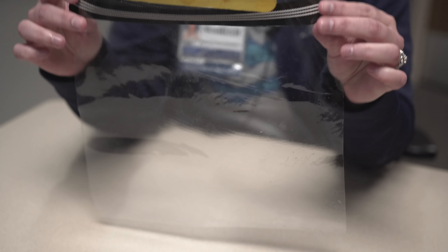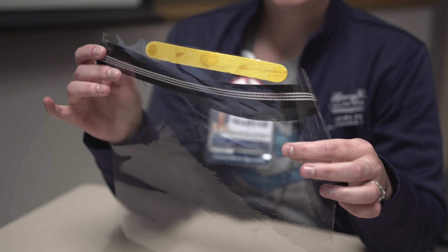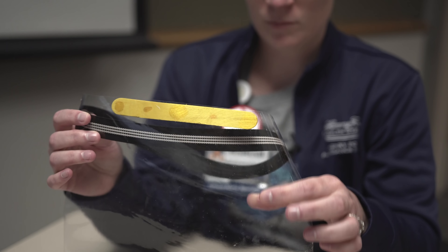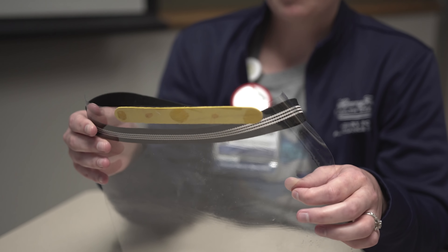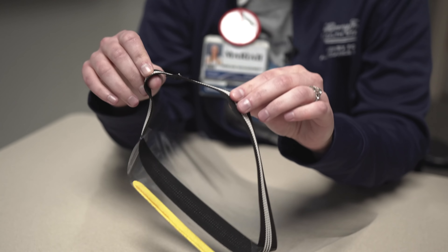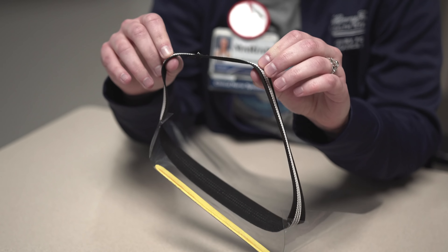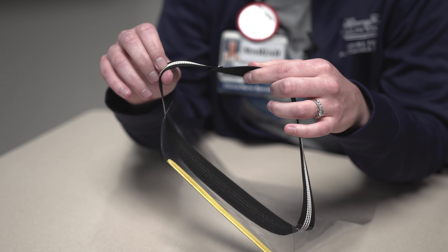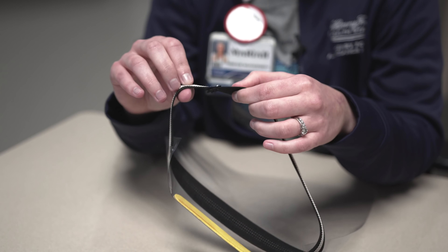For this particular product, we chose a material that was easy enough to see through and that could also be bleached while maintaining the integrity of being visibly seen through. With staff comfort in mind, we chose a thicker elastic band because we felt it would provide comfort while also allowing ease of on and off.